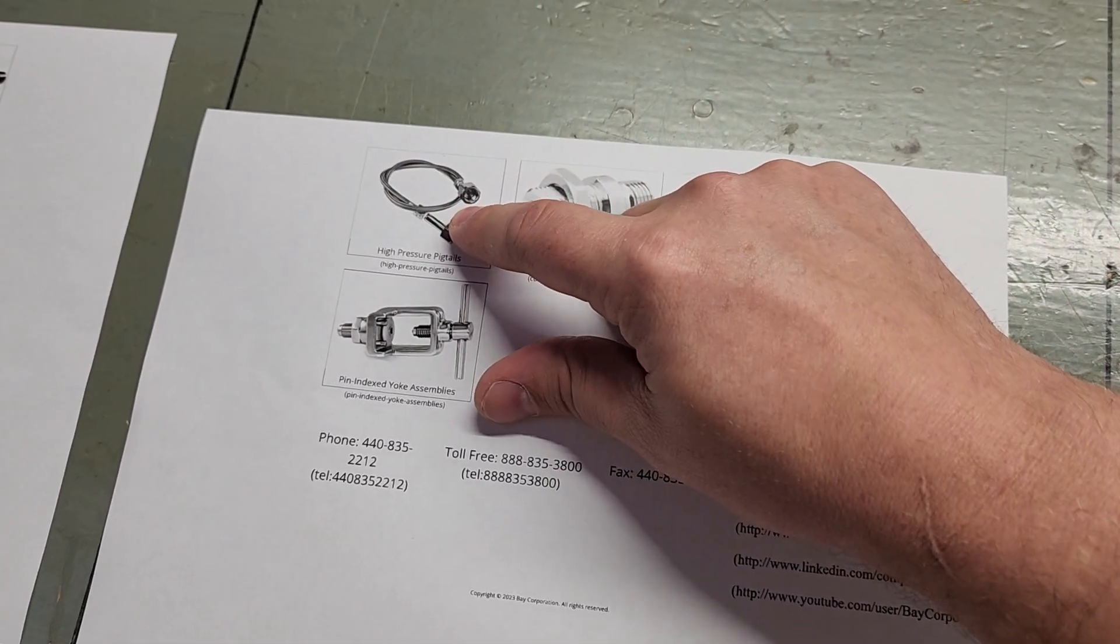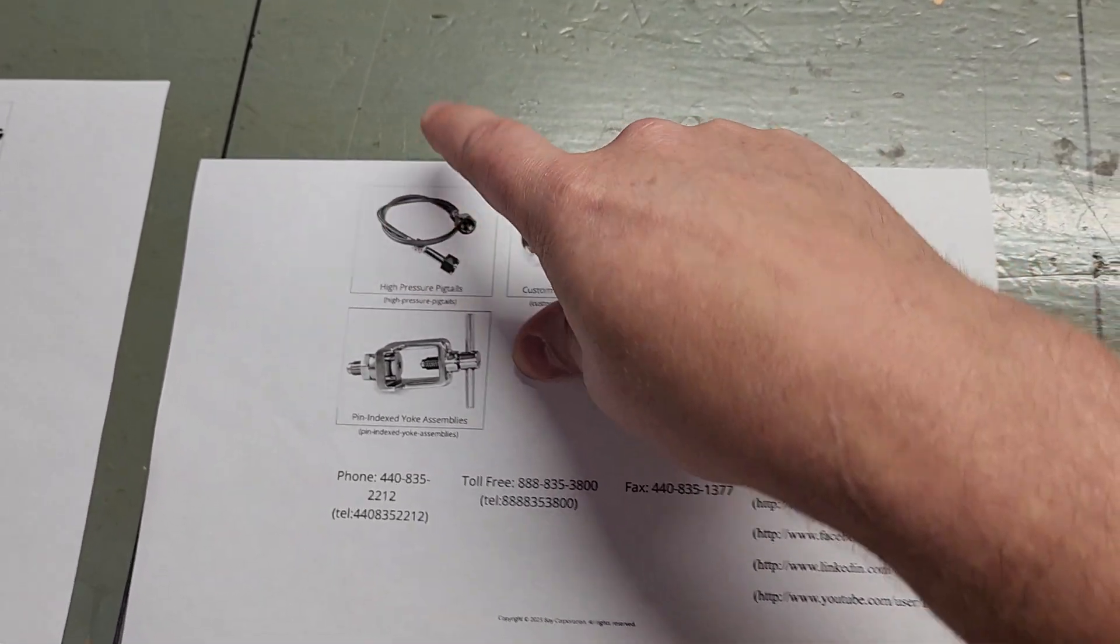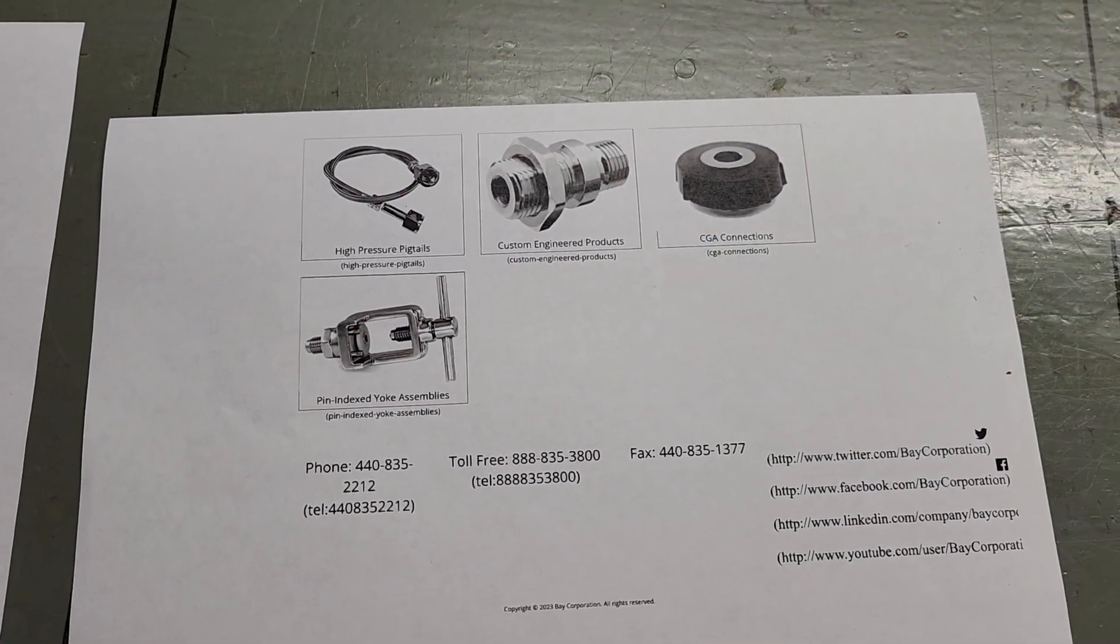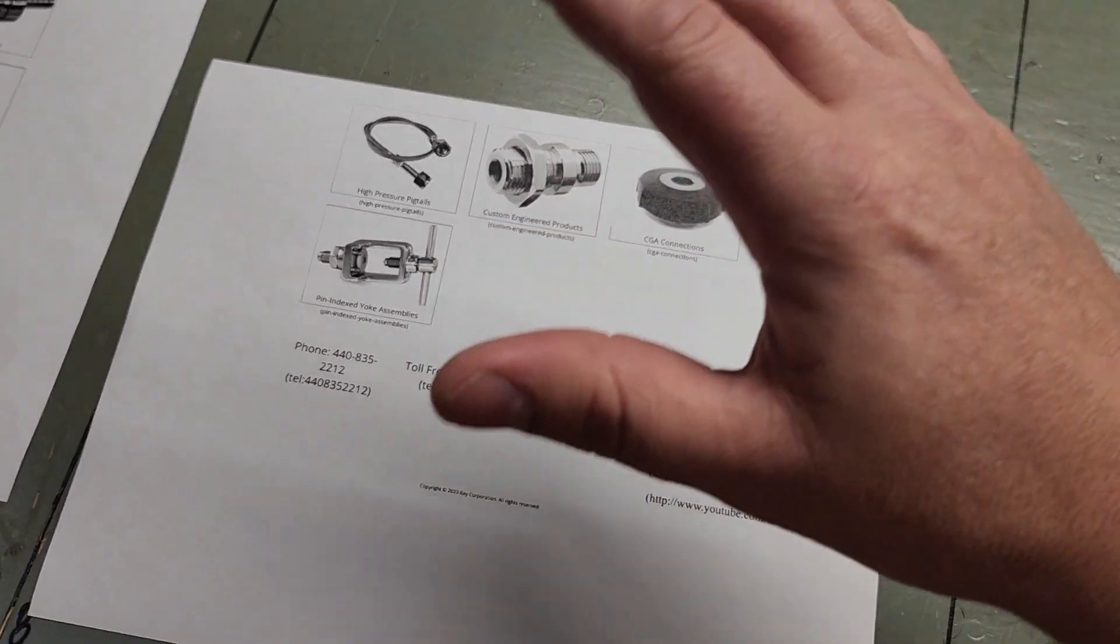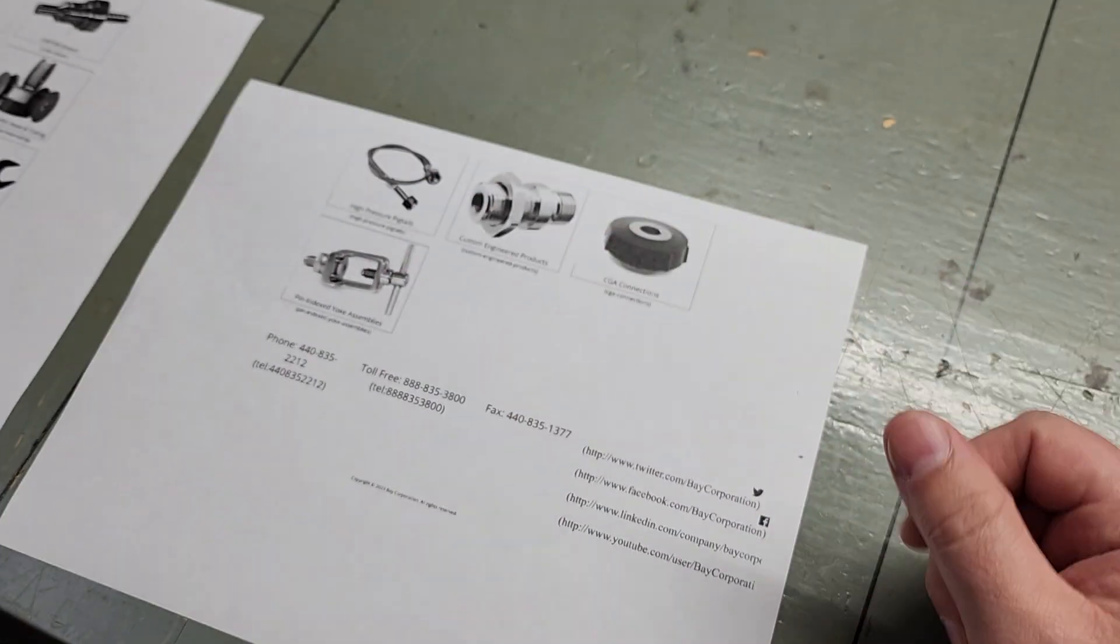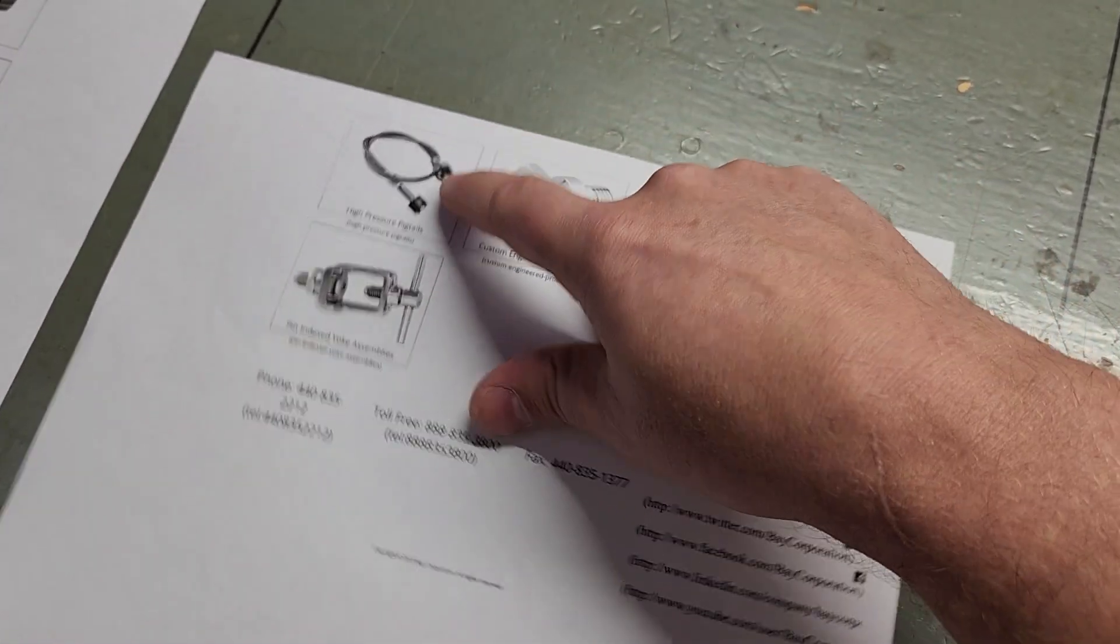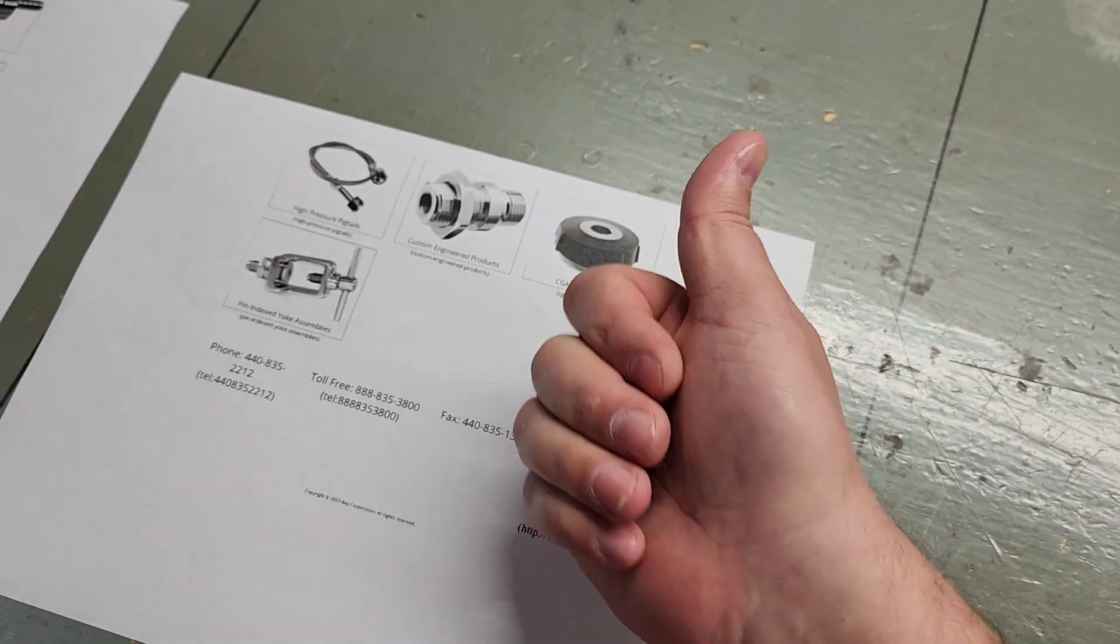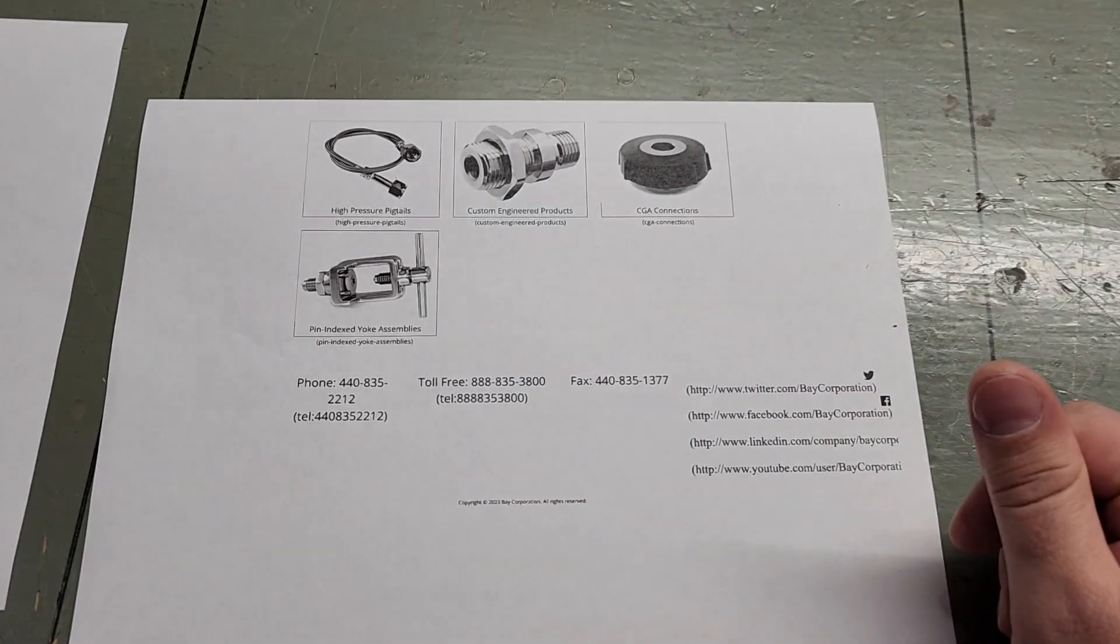Compressed gas fittings—the high-pressure hoses, you're going to find these. It's got a stainless steel exterior. That's because that is abrasive-resistant and it handles high pressure of like bottled carbon dioxide. So most of these hoses here are going to be for wall gas, which has strictly regulated pressures, but when you get the bottled, that's when you're handling much higher pressure—so bottled oxygen, bottled nitrogen, even bottled carbon dioxide—much higher pressures.